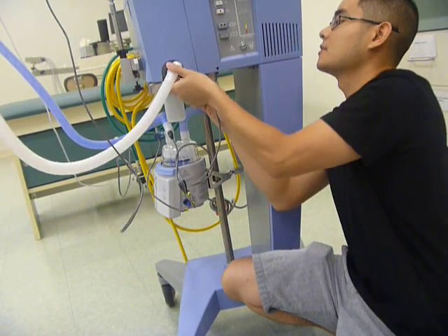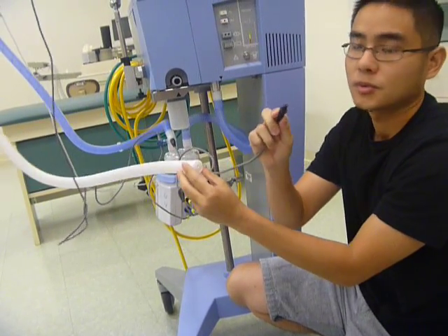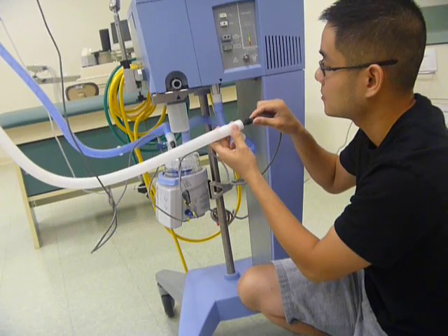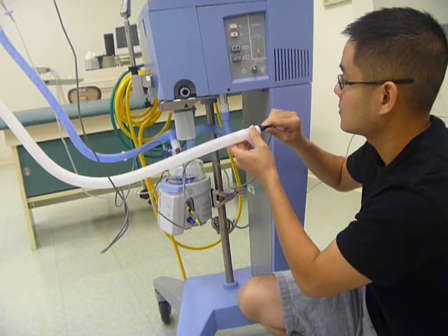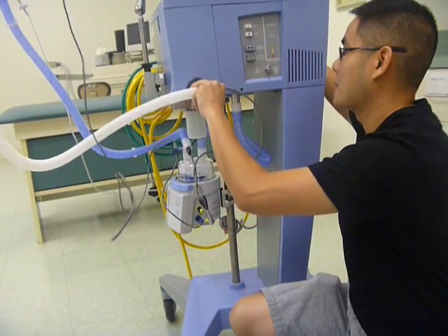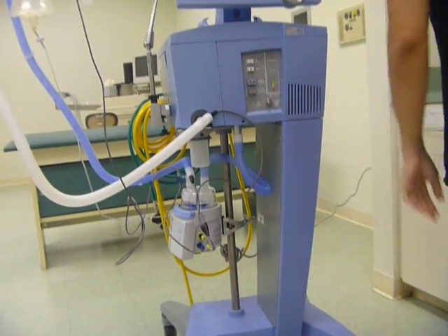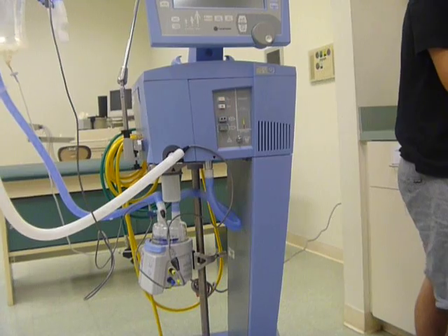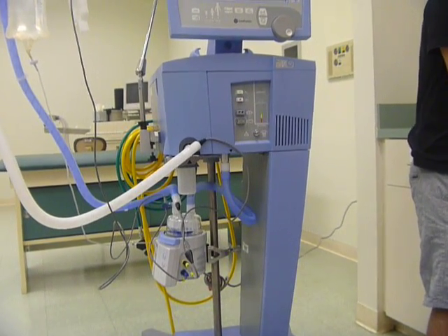This one on the expiratory, there are two prongs — two prongs. I'm just going to line that up. You'll have to finish. You'll do it today, you'll do it next week, you'll do it to review for your check-off, you'll do it during your check-off. In your second year, you do it, and then in the hospitals.